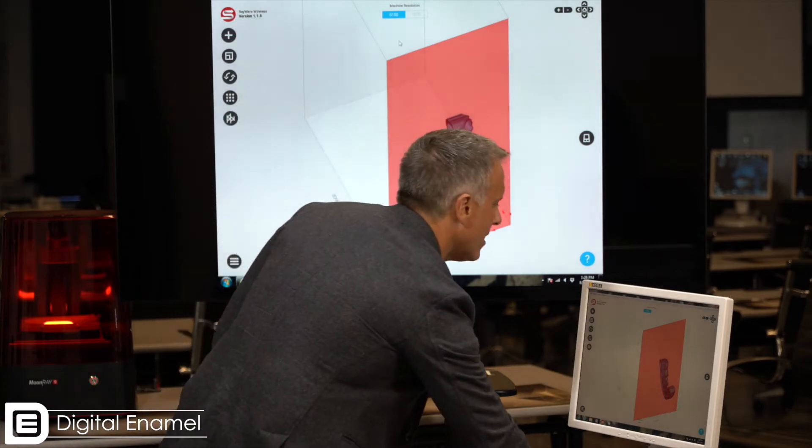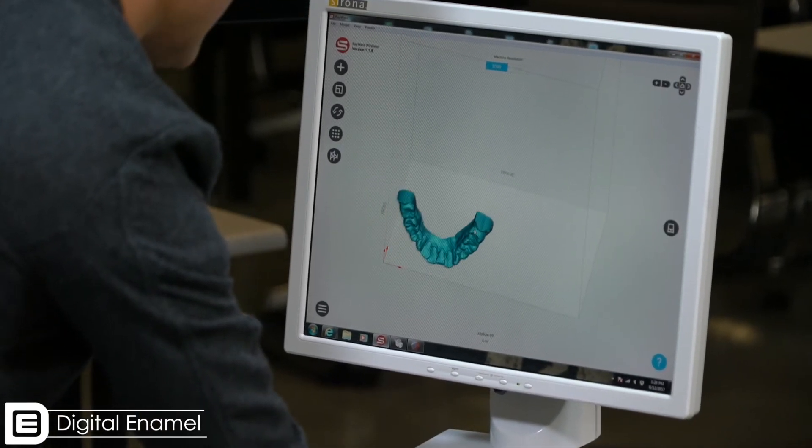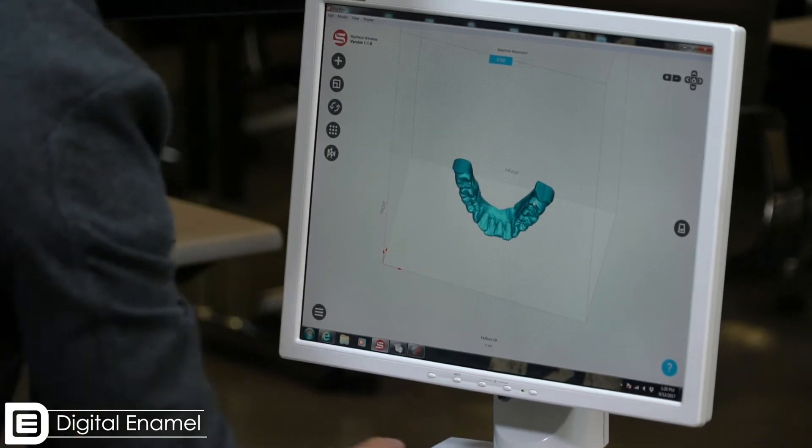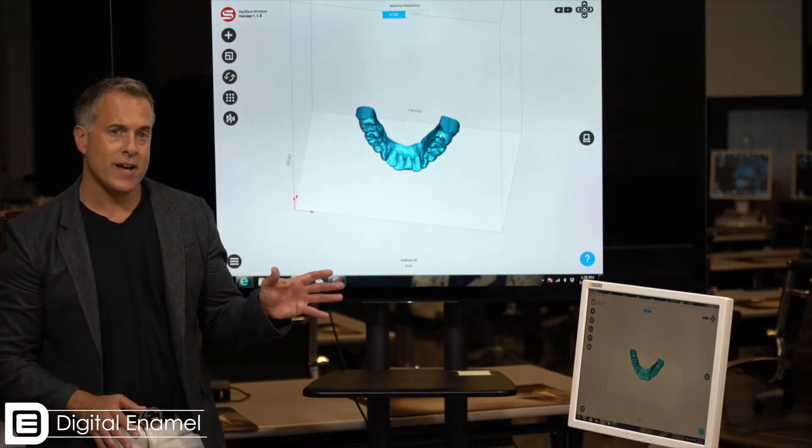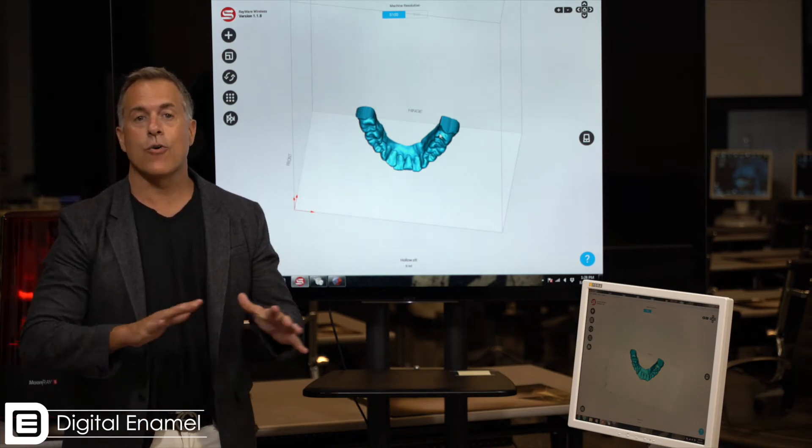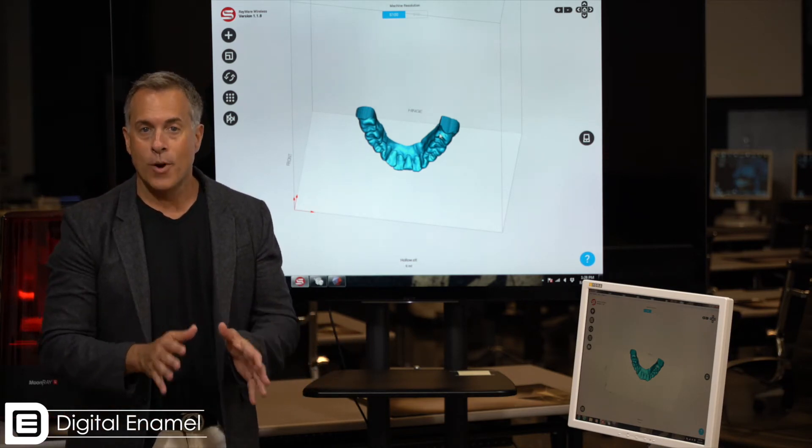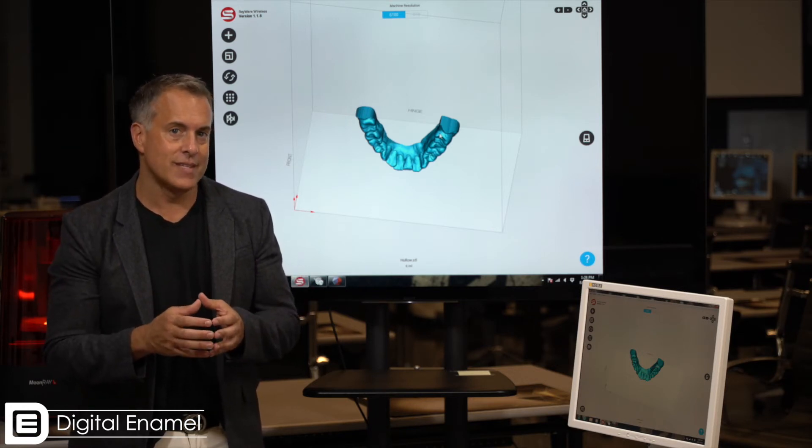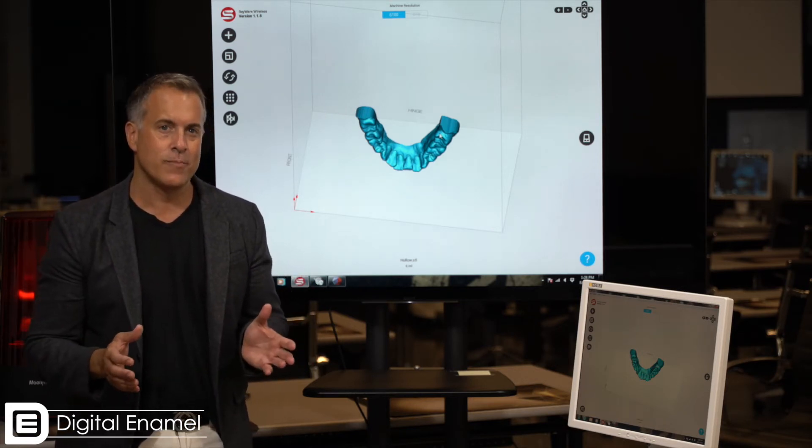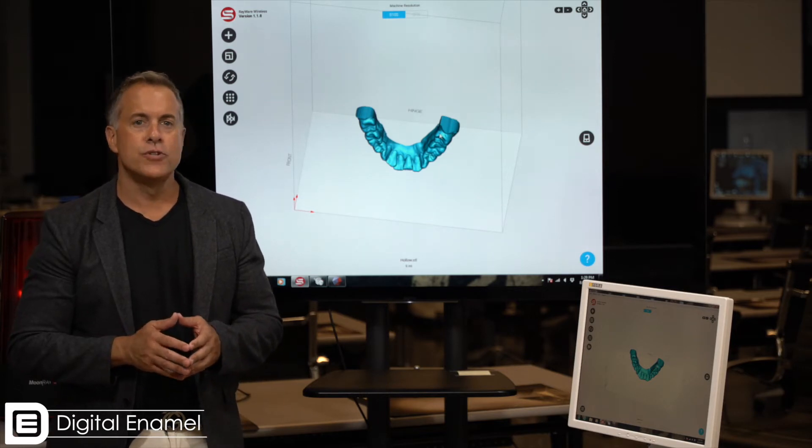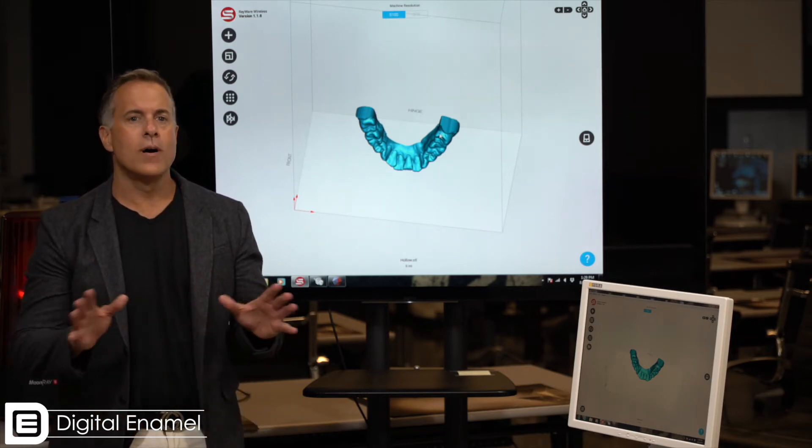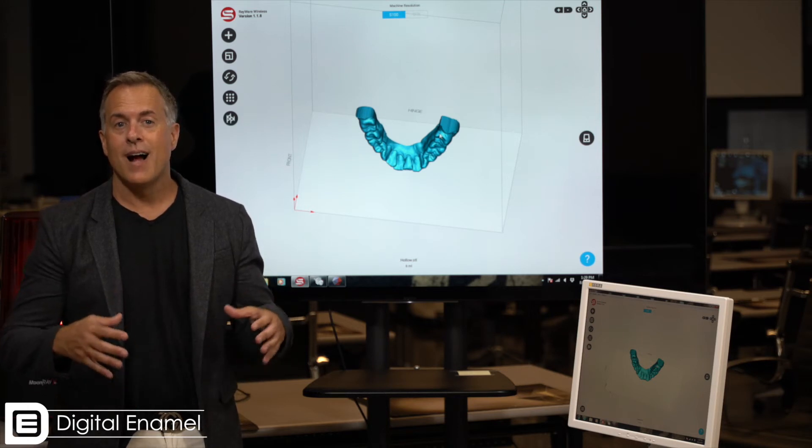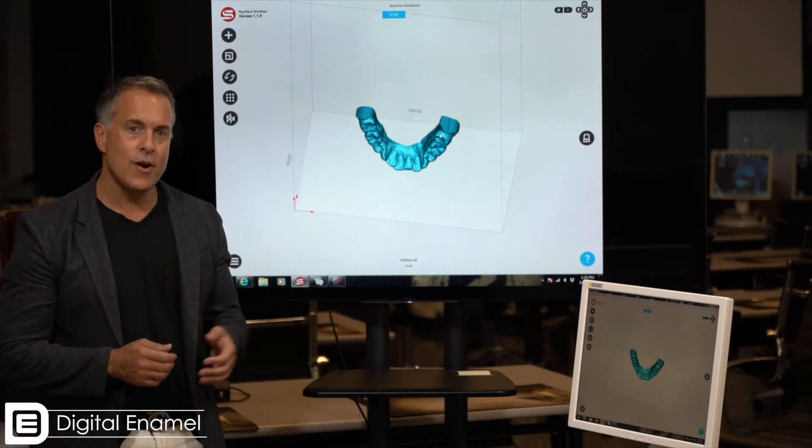So we'll go ahead and move it around. We want to position this model in the center of the build plate. Now MoonRay has a special camera that has accuracy across the build plate. Most printers are most accurate in the center, then as you get to the periphery things get a little fuzzy. So just as a matter of habit, if I'm printing one model or a couple of models, I try to center them around the center of the build plate.